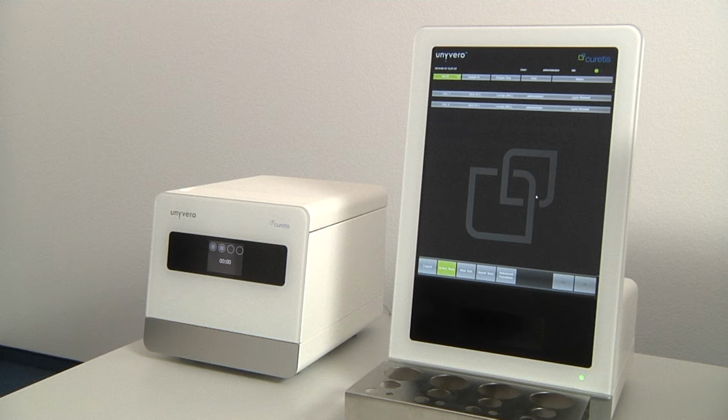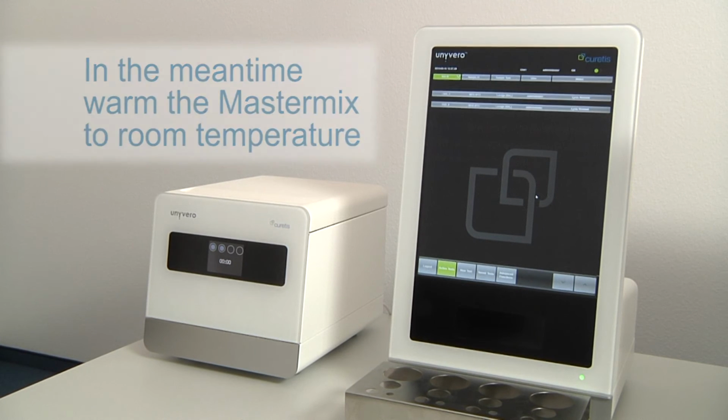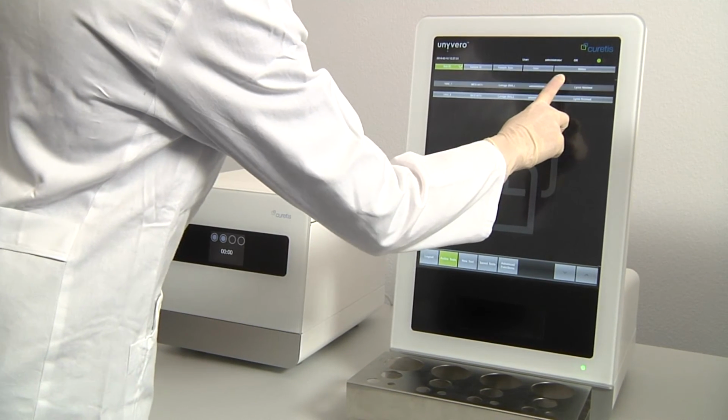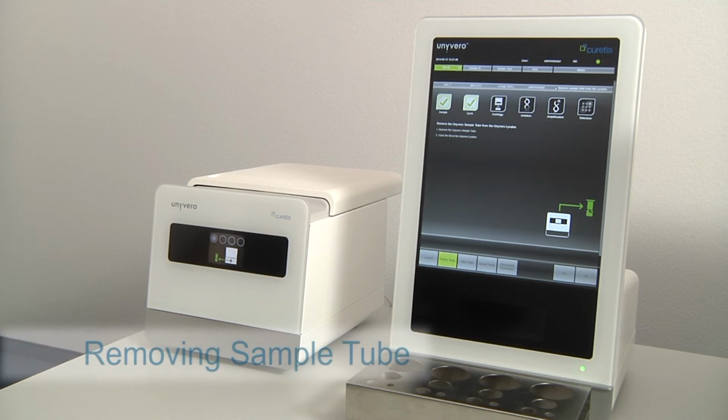If you haven't done so already, now is a good time to take the Unyvero master mix out of the freezer in order to thaw it. The master mix can only be used at room temperature. 30 minutes later, the lysis will be finished. Open the lysator by tapping the corresponding grey bar for your patient sample run on the cockpit and remove the sample tube from the lysator.